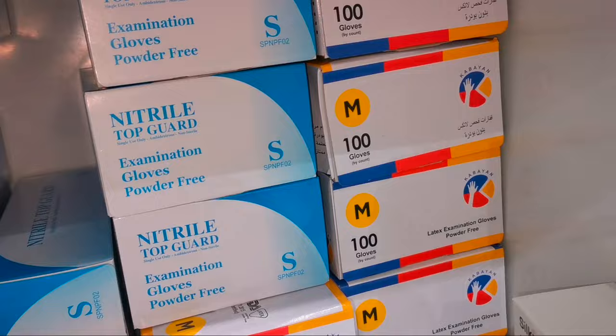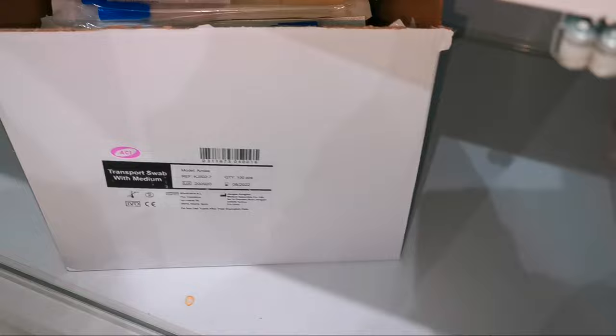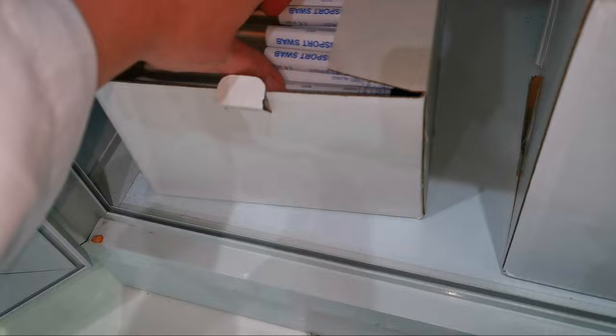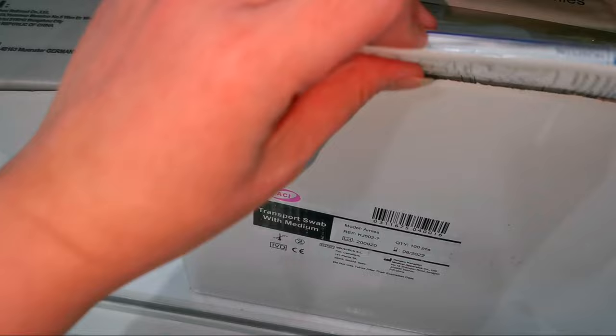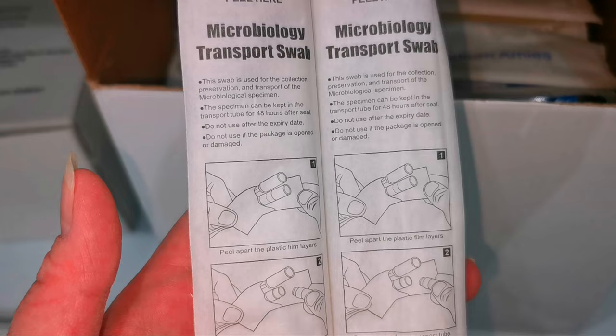Gloves, air freshener, the sterile swab. This is the Amies transport medium.